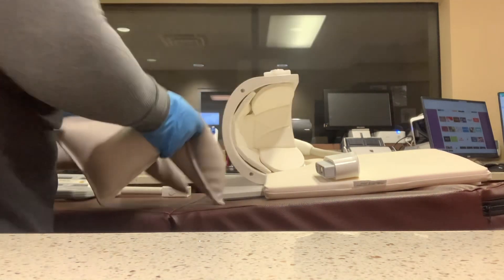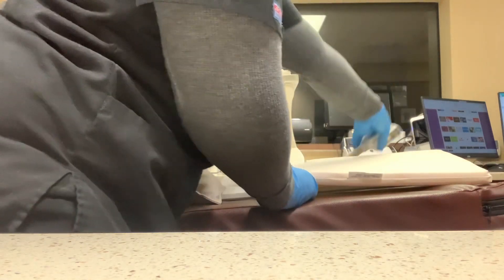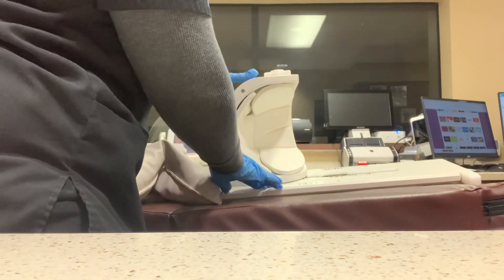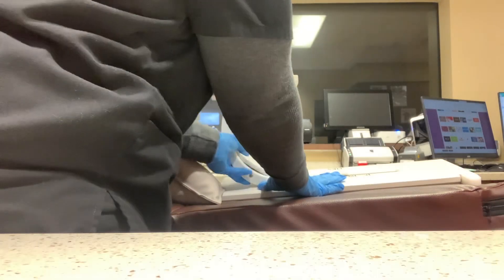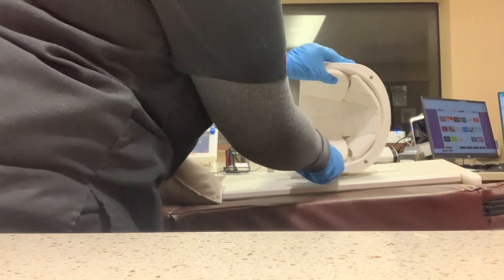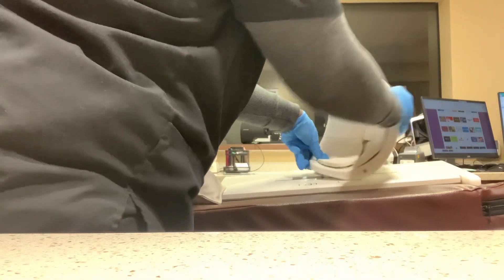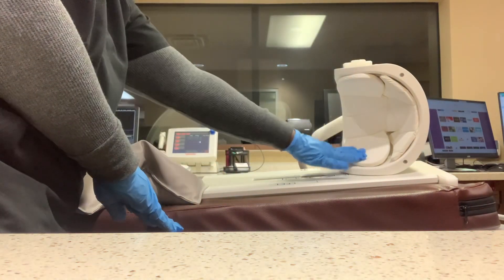I have sandbags because I use them for the shoulder coil and it can slide from side to side. You can take it off and then flip it for the opposite shoulder. This button right here goes into the part of the coil that's on the table. Thank you all for watching.